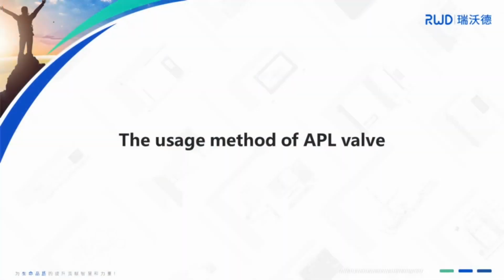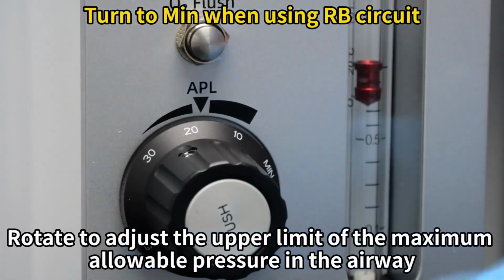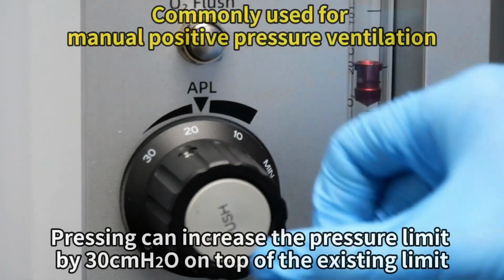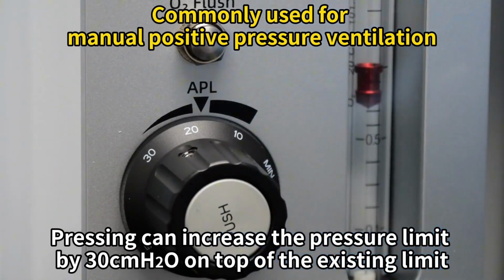The usage method of APL valve. Rotate to adjust the upper limit of the maximum allowable pressure in the airway. Turn to min when using RB circuit. Pressing can increase the pressure limit by 30 centimeters of water pressure on top of the existing limit.